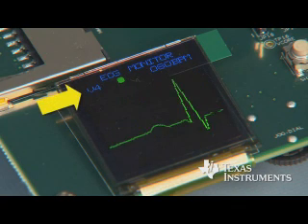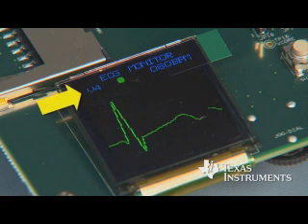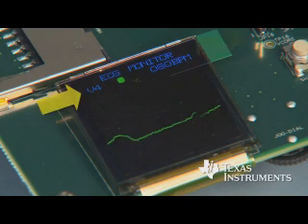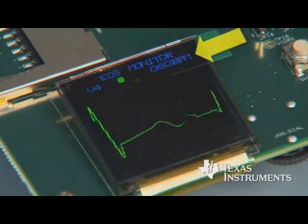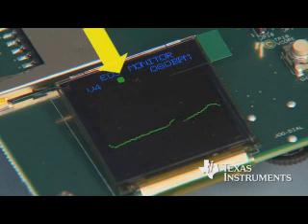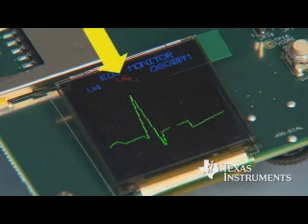One lead at a time is displayed, along with a heart rate. The lead-off status is also shown as applicable.